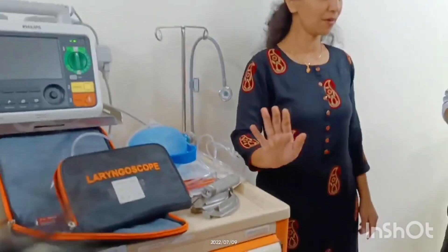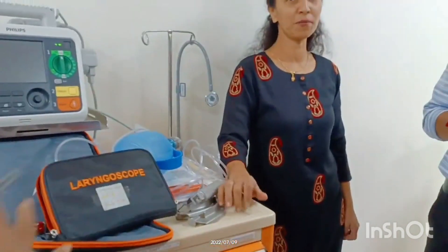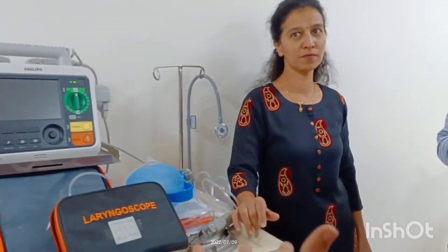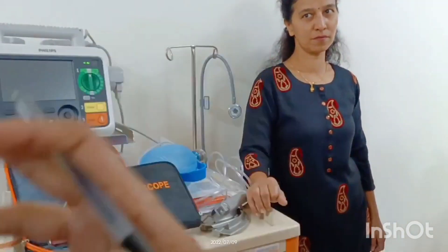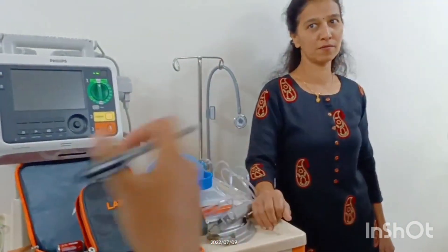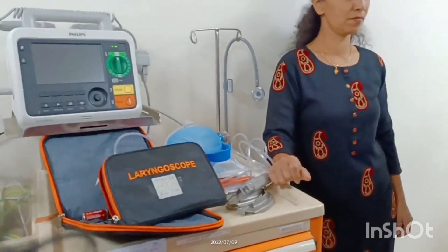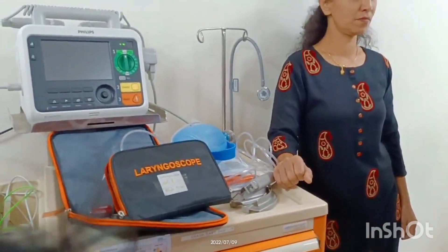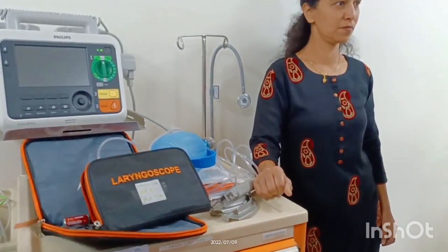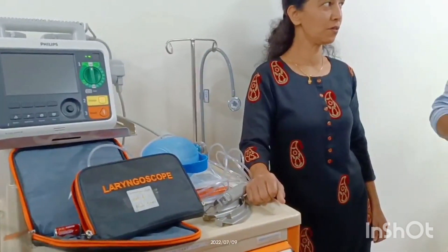What is a crash cart? It is used in emergencies. When a patient has crashed and is having a breathing issue, an ambu bag comes in handy. It contains all the medicines, drugs, and all the equipment required for intubation.